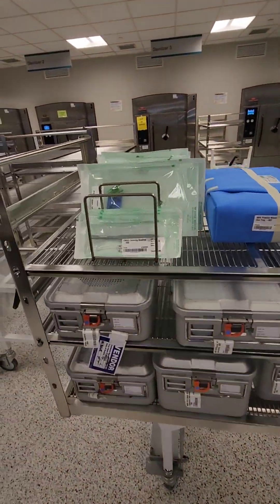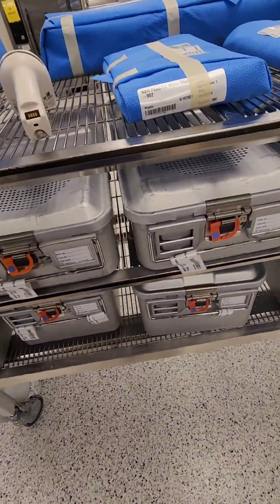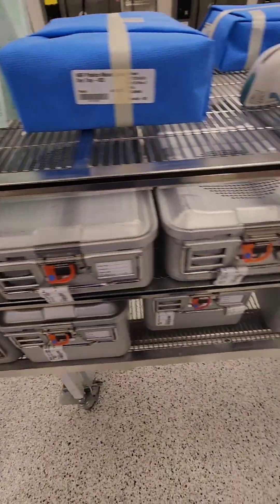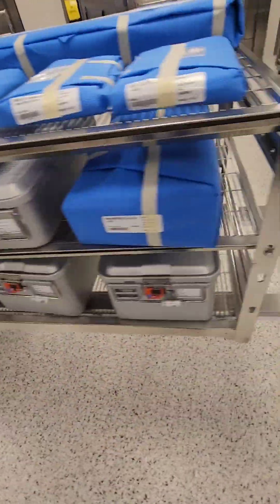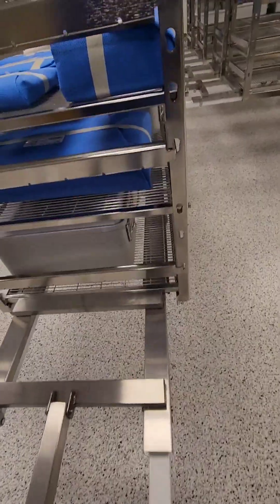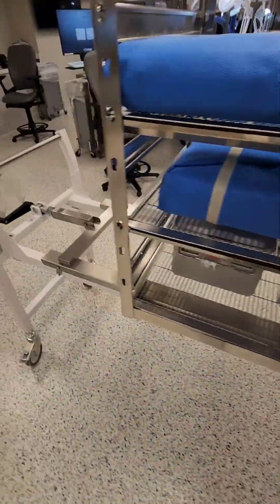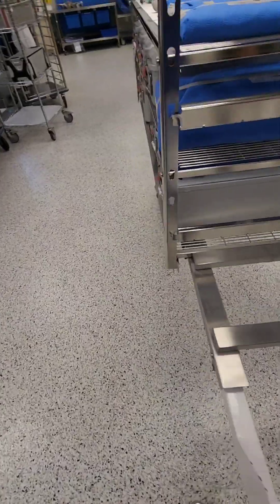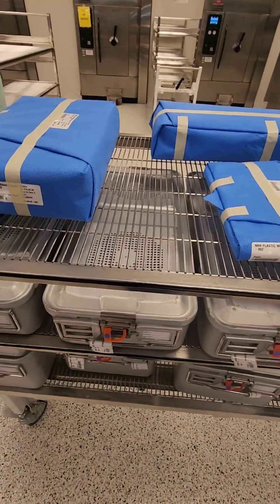I have rigid containers, wrapped items, and peel packs. Peel packs are stood on end, paper to plastic — make sure it's not too tight or congested. Check your rigid containers to make sure all the locks are present, the filters are in place, and the correct parameters are chosen on each package. Check both sides for the right type indicator tape. Make sure there is visual space between all your items — you don't want items stacking or up against each other. Even though this container system allows for stacking, we don't do it because we have the space.